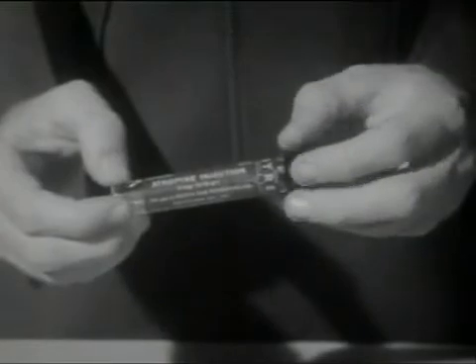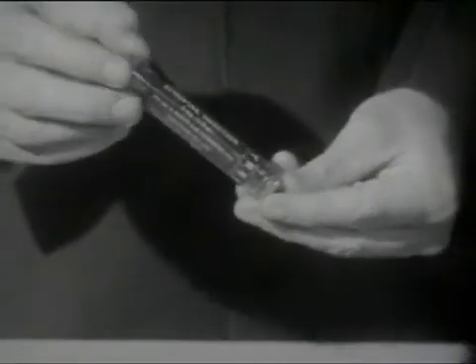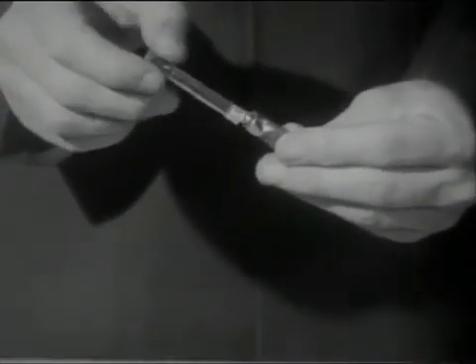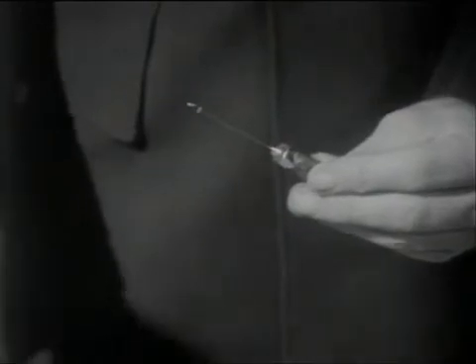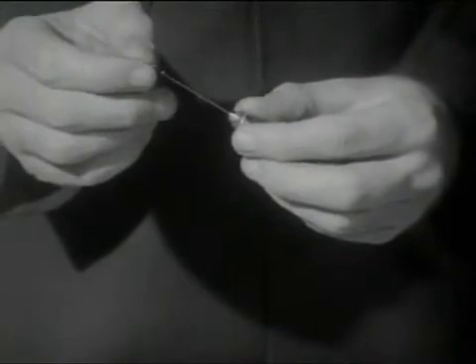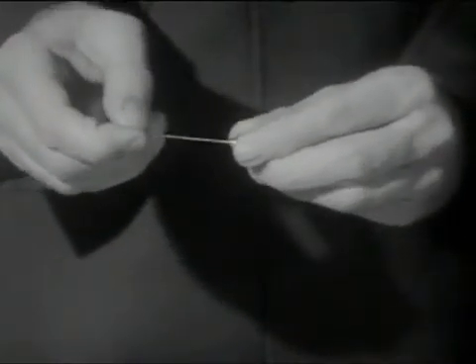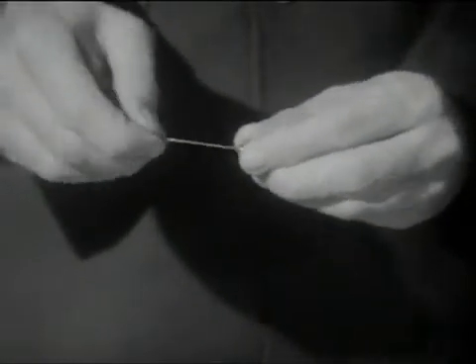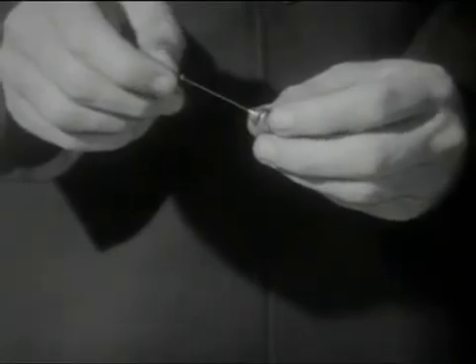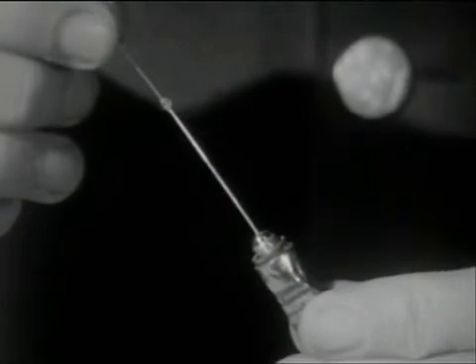The injection procedure for the atropine Syrette is somewhat different. The Syrette is removed from its container. The plastic cover is unscrewed and discarded. The wire loop is pressed down firmly with a twisting motion as far as it will go. This will pierce the inner seal at the base of the needle. To make sure that the seal has been broken, the tube is then gently squeezed from the bottom until a drop of the liquid solution appears at the tip of the needle.